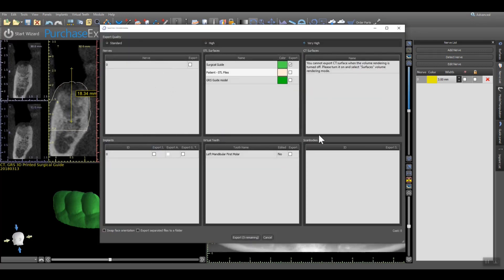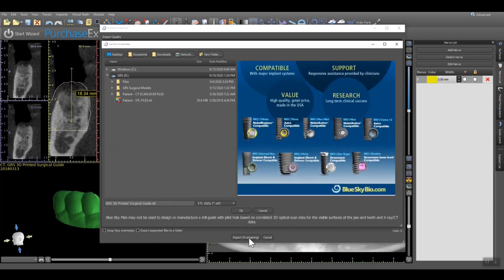A window will appear in which to select all of the various items that can be exported for 3D printing. Most often the only item to be 3D printed is the surgical guide; however, to confirm the physical fit of the surgical guide and to confirm drill depth and orientation, it is highly recommended to 3D print a GRS model as well. Additional videos demonstrating how to create a GRS model using Blue Sky Plan, along with the benefits of using a GRS model, can be found at grsguidesystem.com. At this point, export each individual STL file separately, select the name and location for the exported data, and click OK.